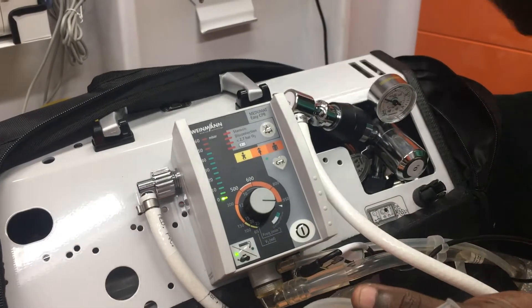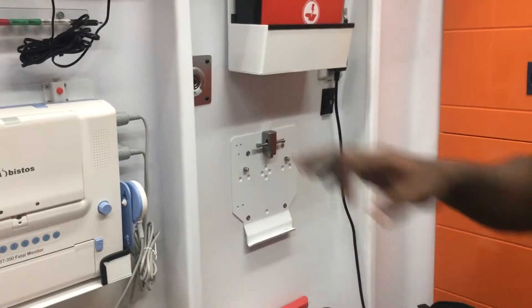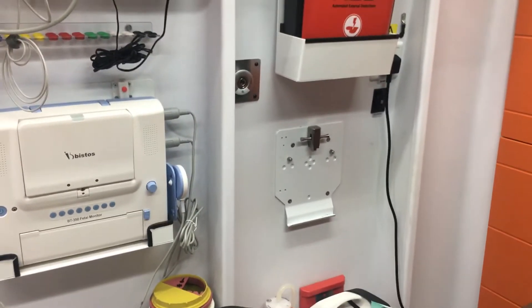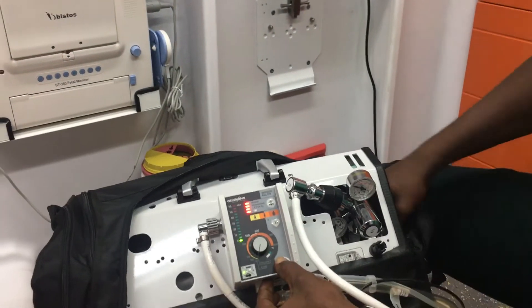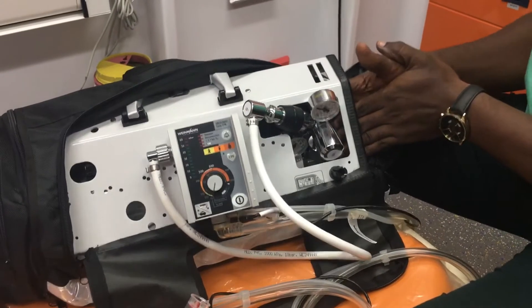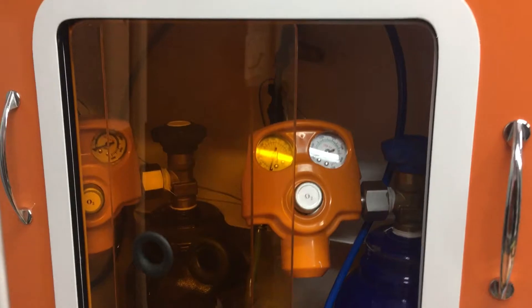Now let's look at how to work it in the ambulance. We turn it off and work it with the cylinder in the ambulance. We close the oxygen cylinder and, as we always advise, when you are in the ambulance do not depend on the small cylinder attached to the vent — rather depend on the mounted cylinder. So we fix it here.